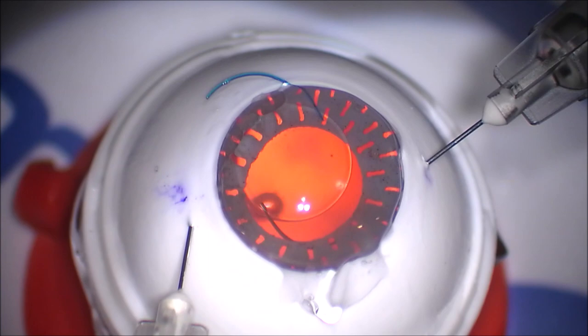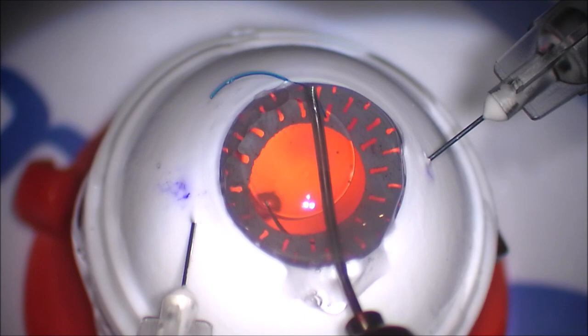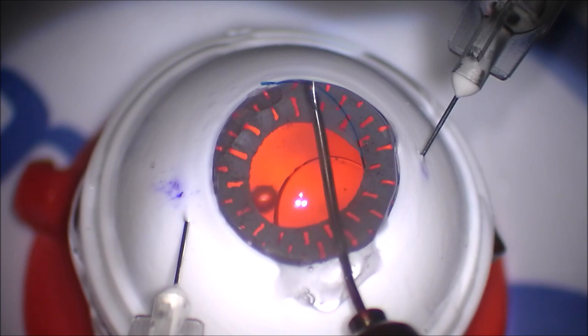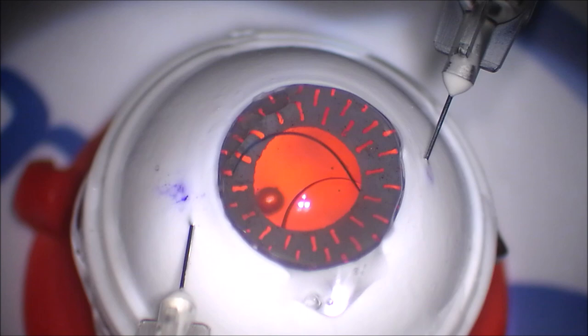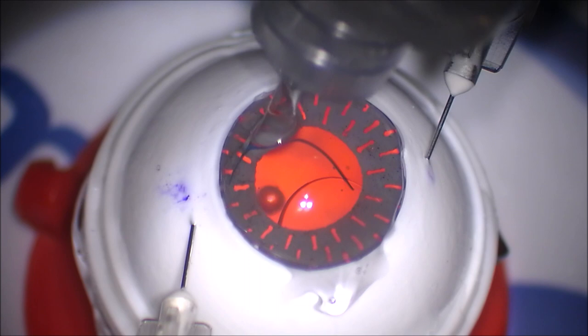And so it's very important that you have good placement of the needle relative to the limbus on either side. And as long as you do this, I do think this is a reasonable instrument to use. It does provide a better and more consistent angle of the needle tracking through the sclera, and you're going to be less likely to have a poor scleral shelf, again, which will likely cause the haptic to point vertically and then have the lens optic sag, which can cause that dreaded tilting of the lens.